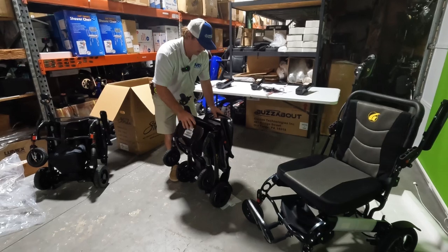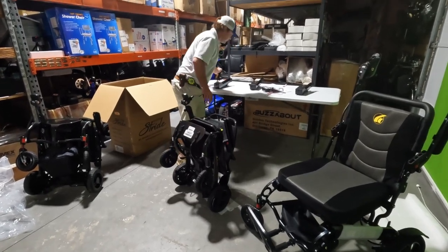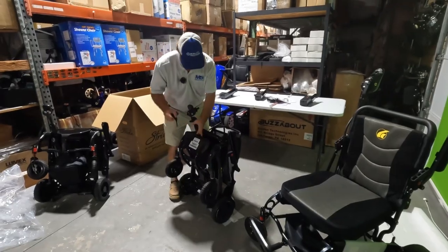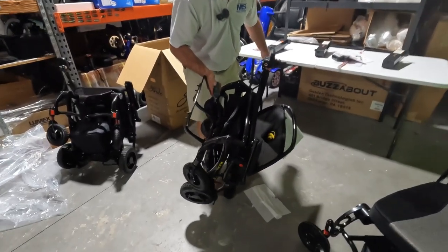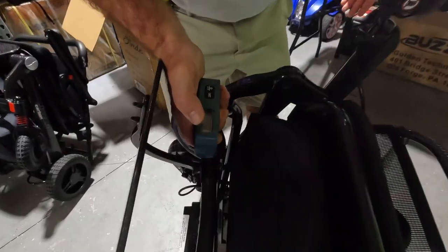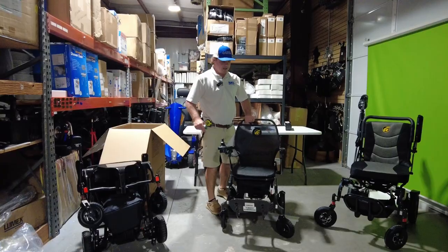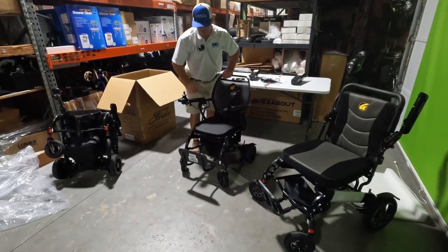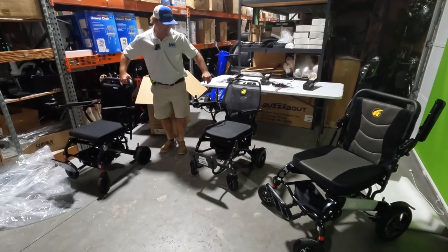Let's fold the Cricket up and check the weight — everyone wants something as light as they can get. With the Cricket, you've got to have it extended out just a little bit for the kickstand to work, but it has an easier spot to grab. The Cricket weighs about 35.6 pounds, compared to 40 pounds on the carbon — five pounds is a big difference.